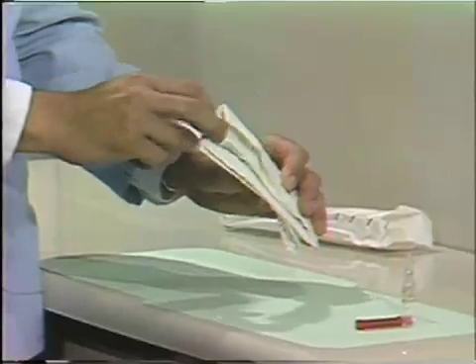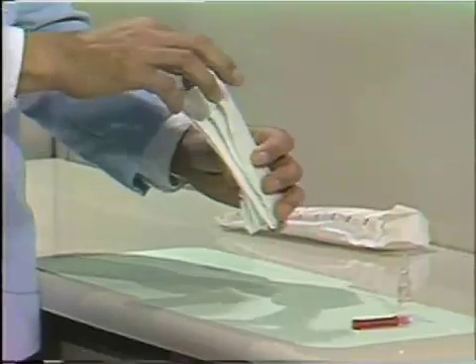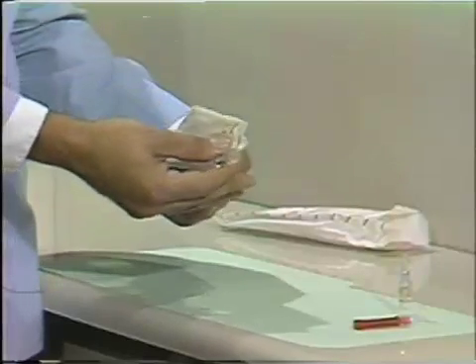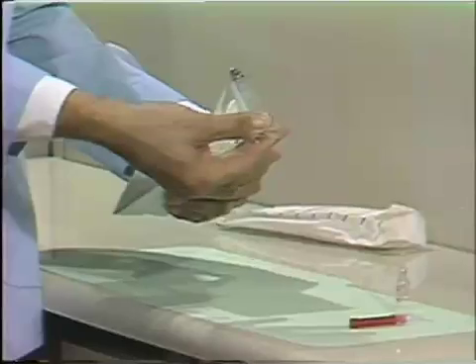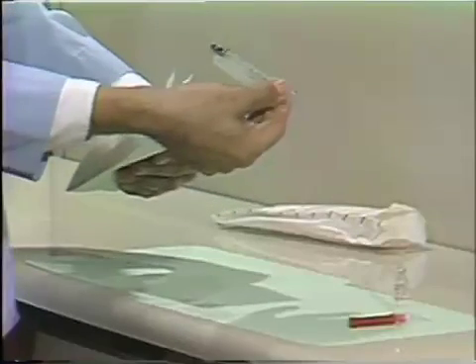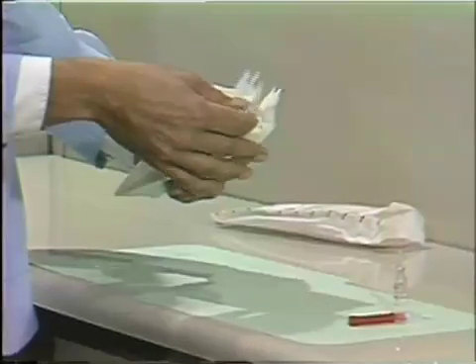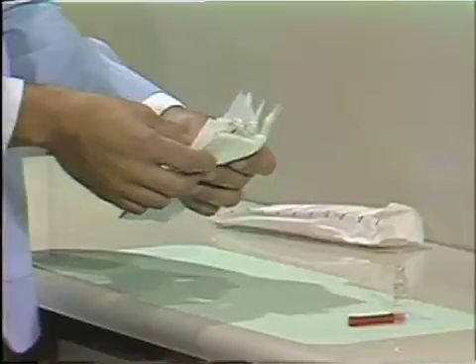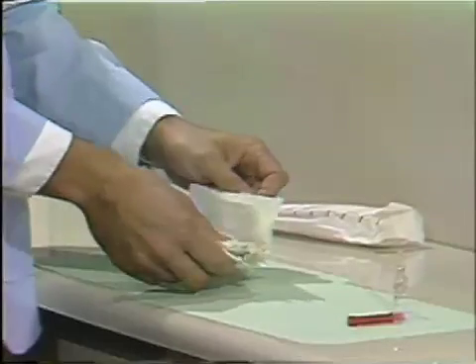Look in and be sure that it's the open barrel end that you're going to get a hold of in the syringe, and not the glass end that should be sterile. Always keep that in the sterile napkin, in an area of the napkin that you haven't handled, so that it can remain sterile.